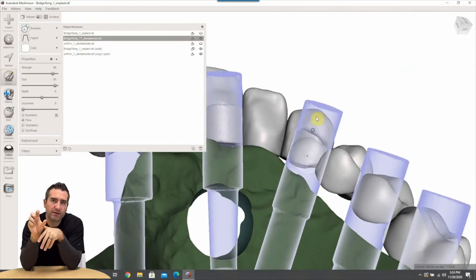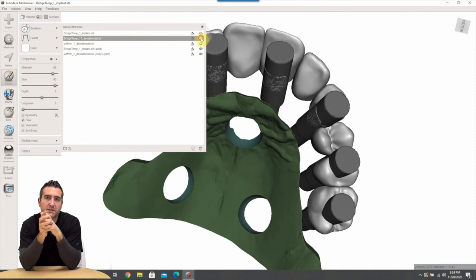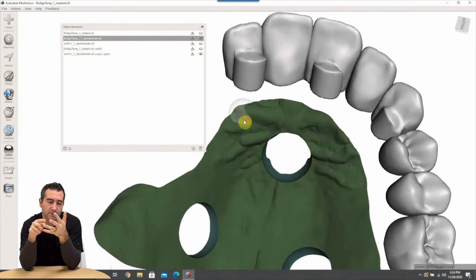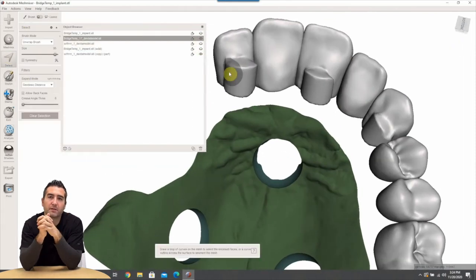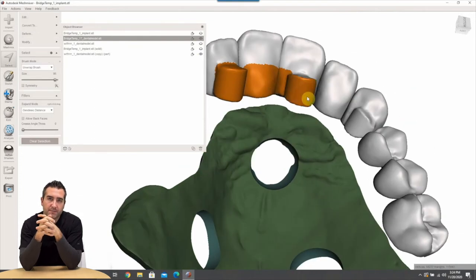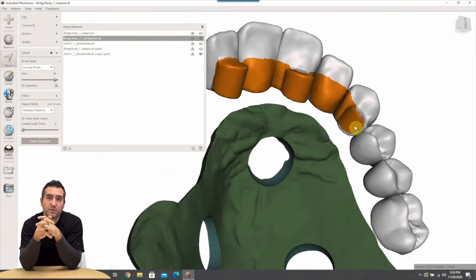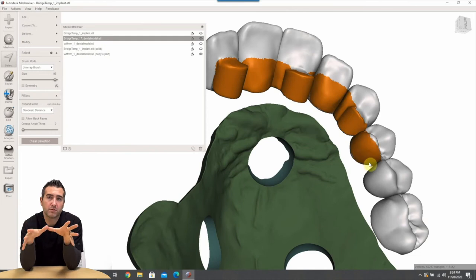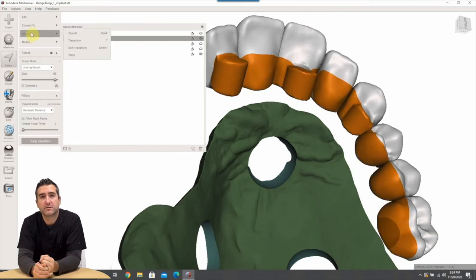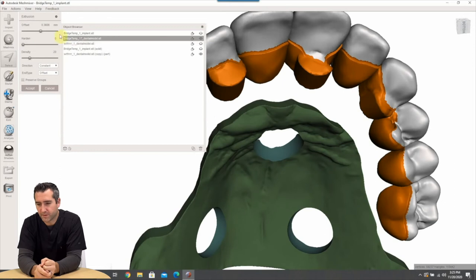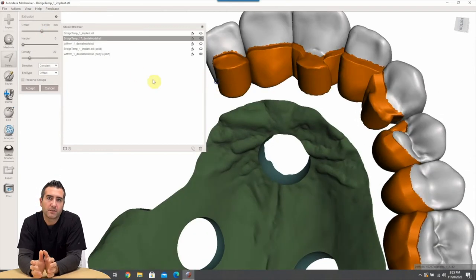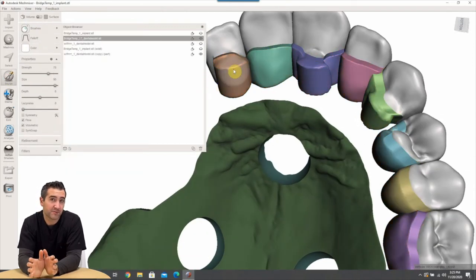Okay so these kind of represent the titanium temp cylinders that will be screwed into either the multi units or direct to fixture depending on the route that you go. And so the next step now is to bulk it all out. You can't be too bulky here because remember this is milled or 3D printed. In this case it's milled on the, milled out of PMMA, but this is why you need a puck mill if you're going to do cool stuff like this. Highly recommend obviously you guys need to check out the 5S mill, it's a game changer.